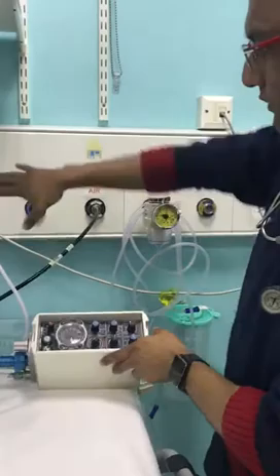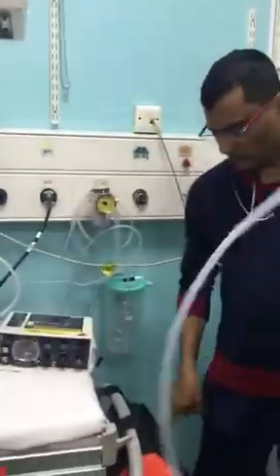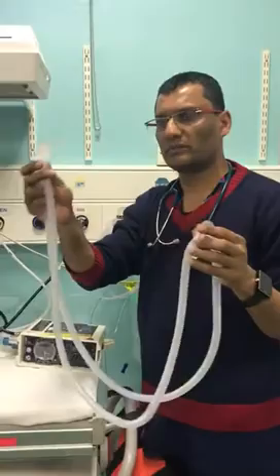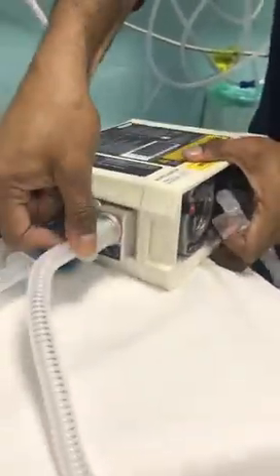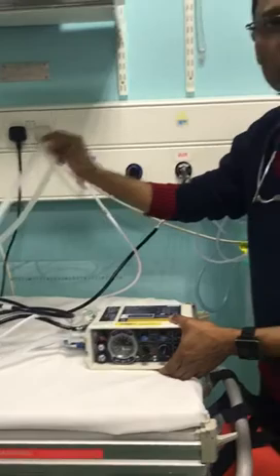Looking at the dials: once you have connected both gases, there is no electric connection — there's just a circuit. This is the circuit that comes in the back, and there are spare ventilator circuits up there if needed. The circuit has an in and an out — they are both the same — you connect it here, one goes here, the other goes here, and this goes into the tube. It's simple to connect, and these are disposable, one use only.